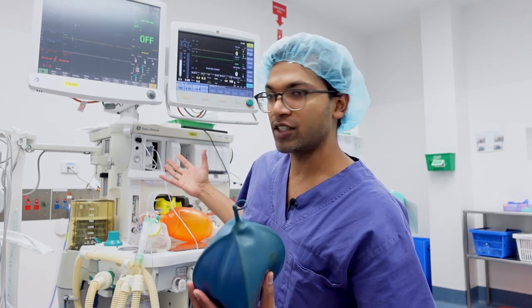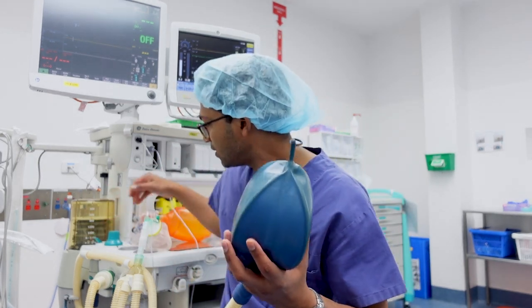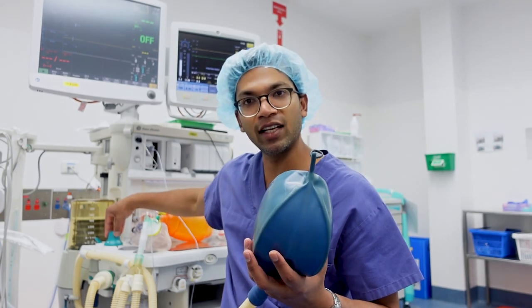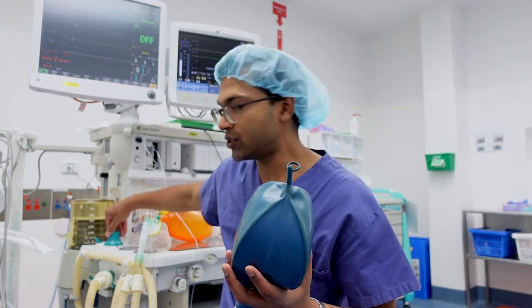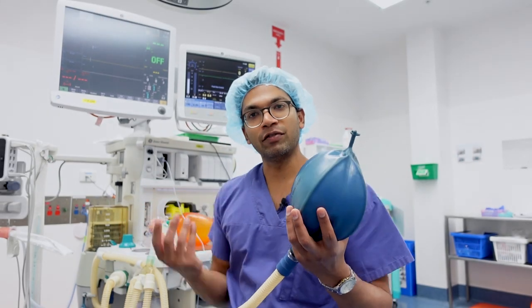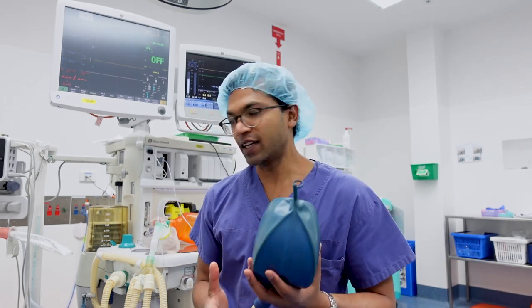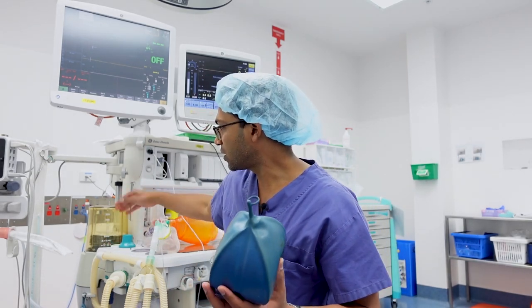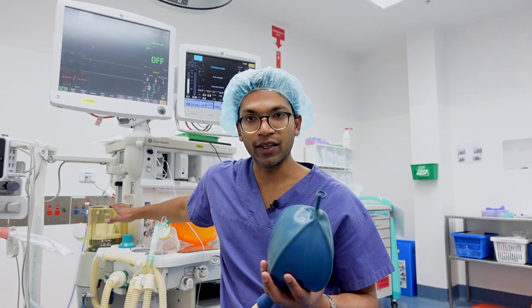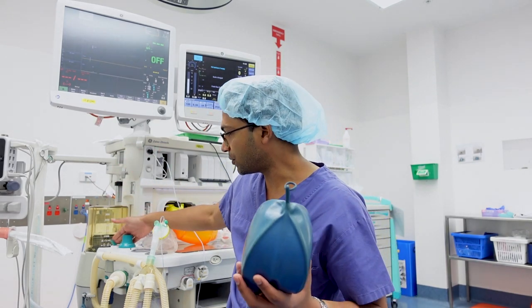You can use positive pressure to fill up this bag to inflate the lungs, and you can dial up this pressure using this APL valve here to inflate the lungs of a patient you're ventilating. Likewise, you can flip the switch and have the ventilator going as well. So it's got a number of ways you can ventilate the patient.